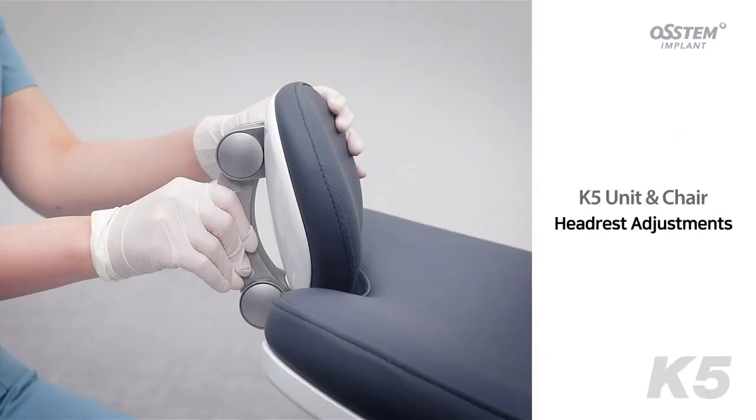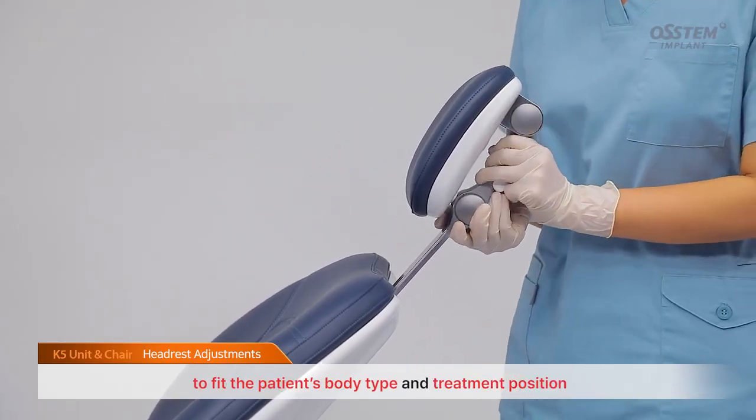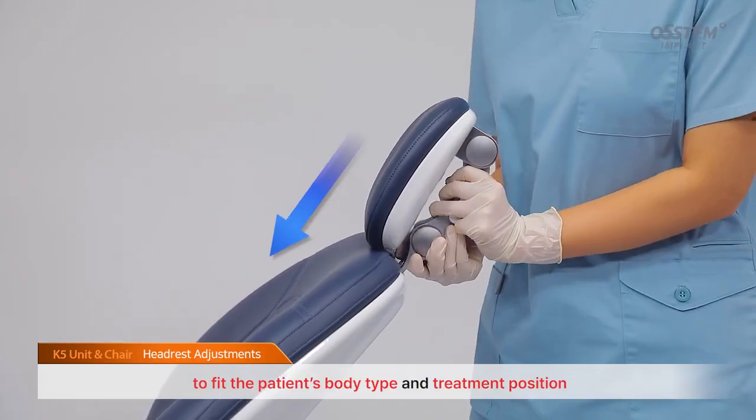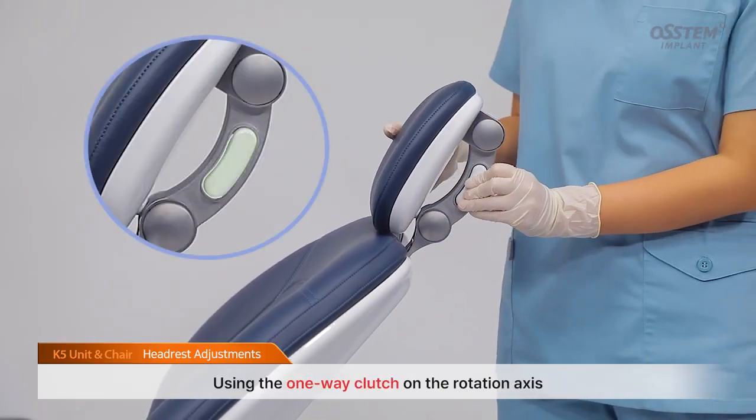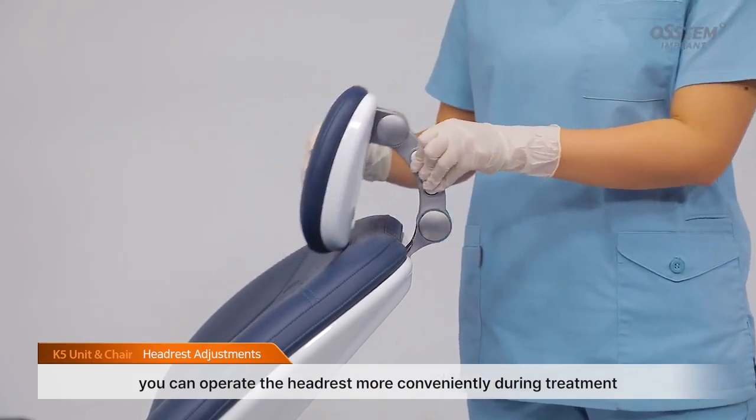Headrest adjustments. The K5's dual-joint headrest can be adjusted to fit the patient's body type and treatment position. Using the one-way clutch on the rotation axis, you can operate the headrest more conveniently during treatment.